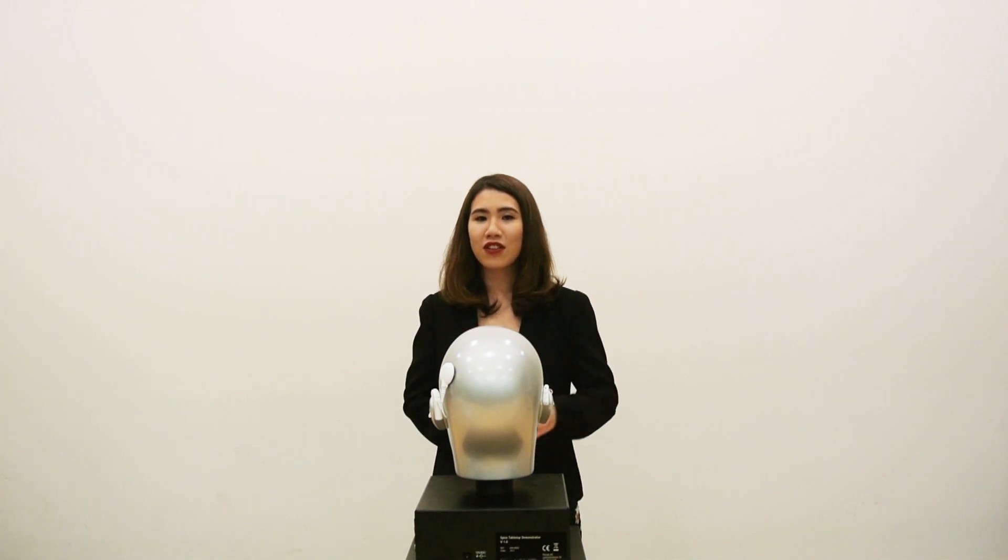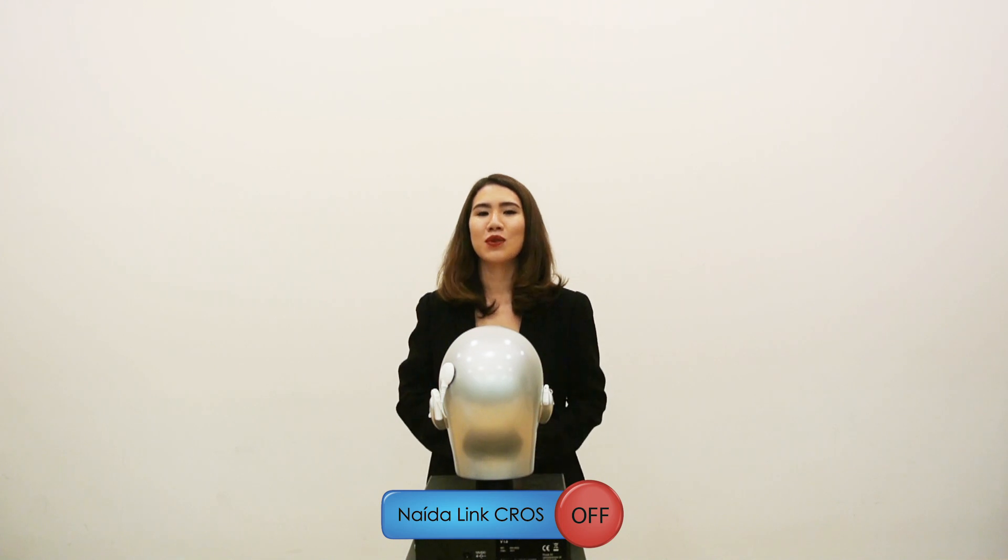This test head has been fitted with a CROS on the right ear and a cochlear implant on the left ear. Currently, the CROS is switched off.